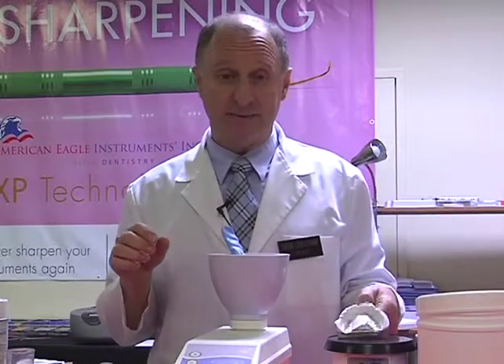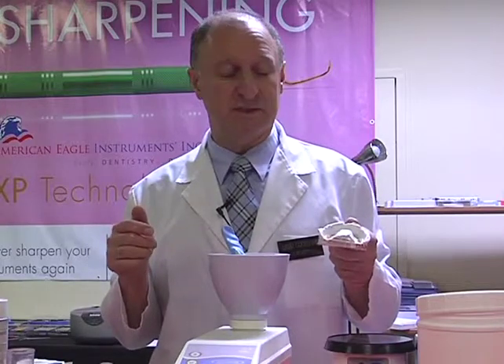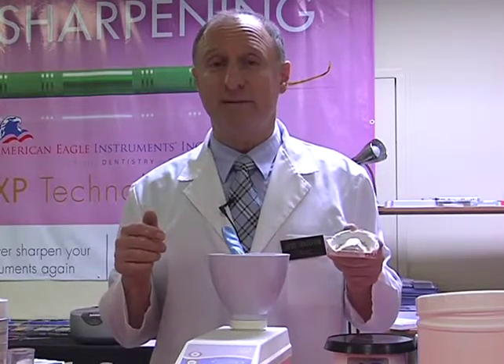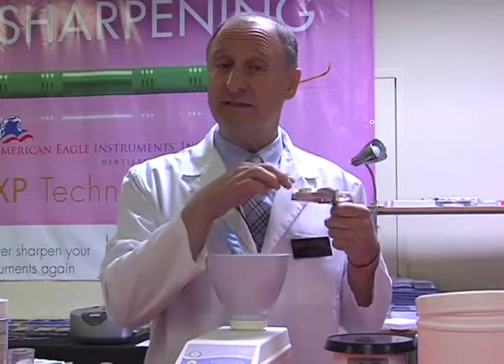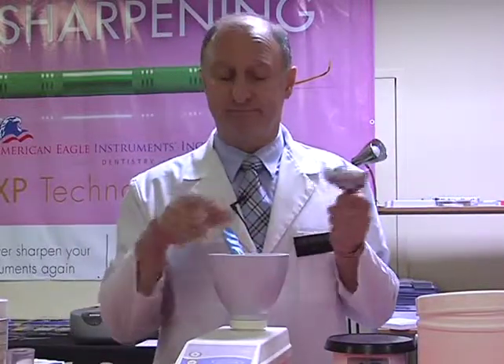The contact time is again according to the manufacturer of our disinfecting solutions. So normally it's anywhere from 5 to 10 minutes. Then we rinse it under the tap, shake off the excess, and then we're ready to pour.